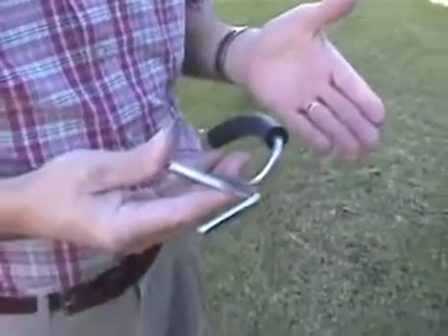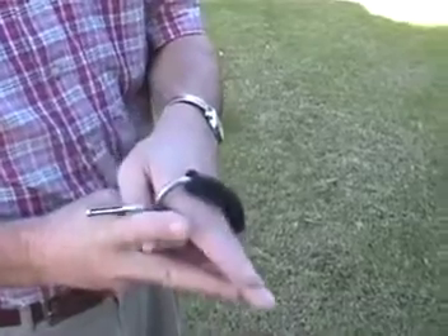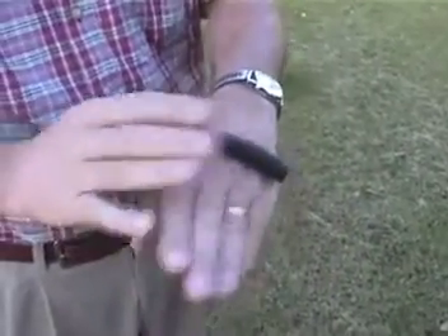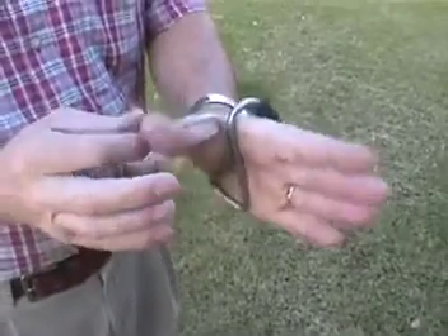This is the California Bander. It's a very simple tool to use. It's meant to fit in the left hand. You slip your fingers all the way past the rubber so that it's past your knuckles, deep into the corner of your palm. The ring end fits over the thumb.